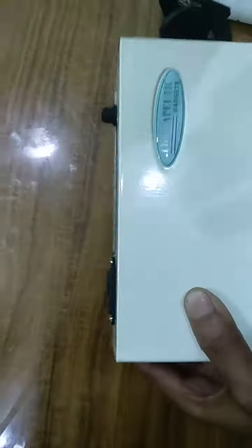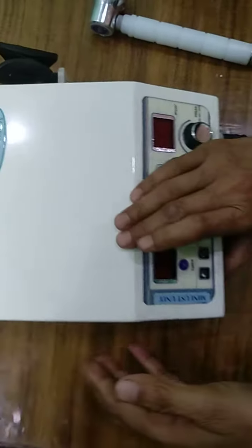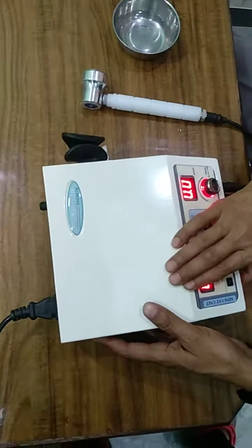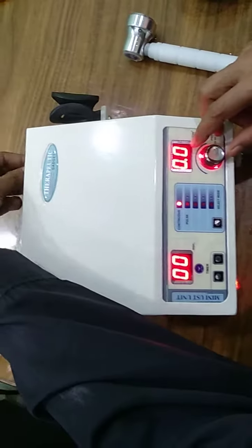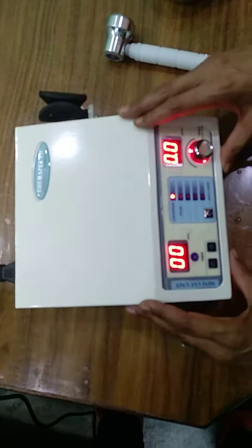Now check. The unit is on. If this fuse has a balloon — meaning it is blown — you can exchange the fuse. If the light indicates on and you can set any parameters, and it gives you sound, the unit is working correctly.